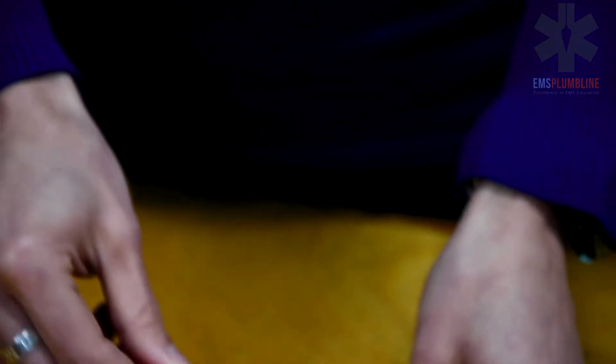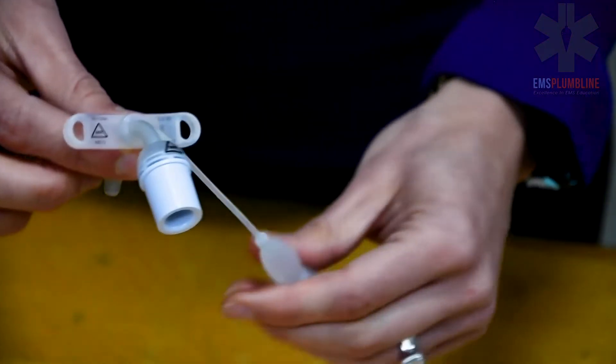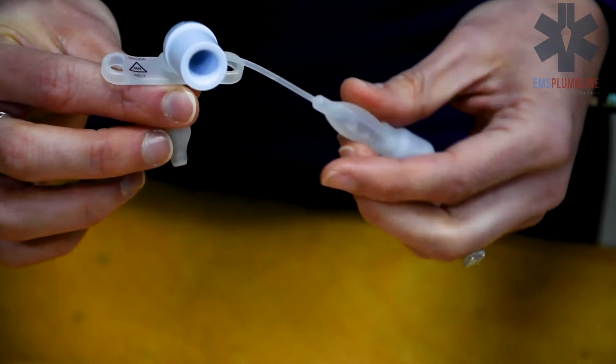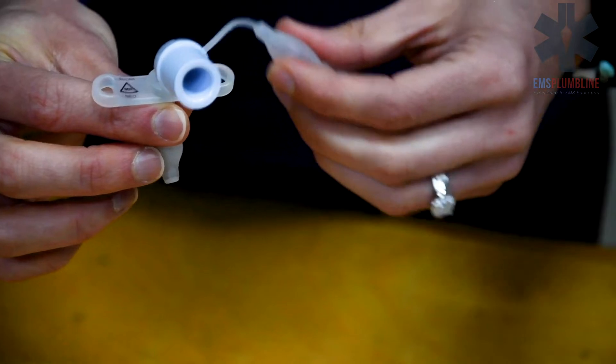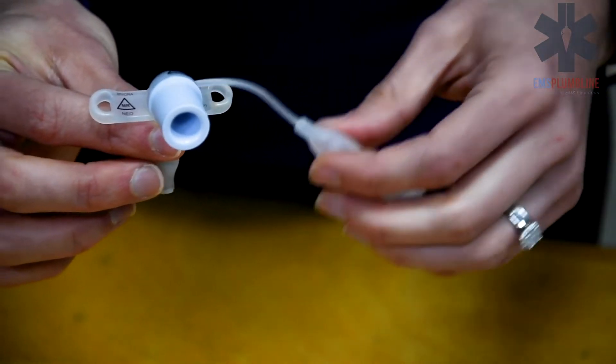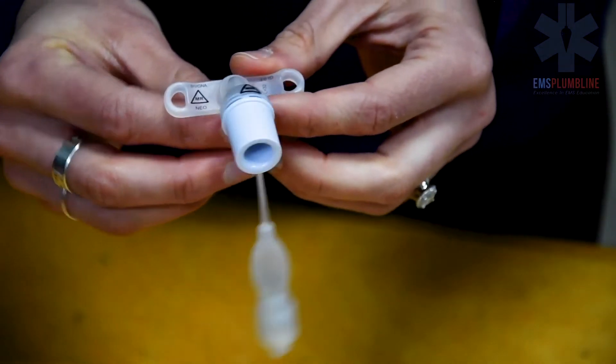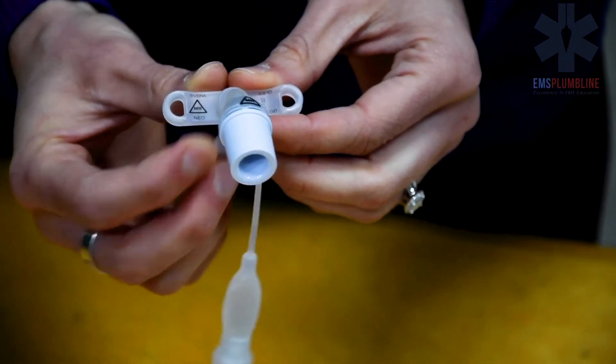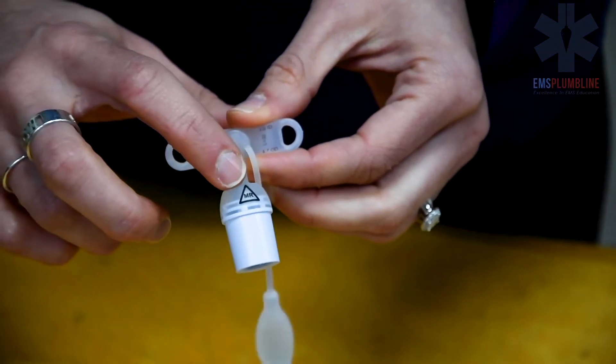This is a cuffed tracheostomy tube, as noted by the balloon line. The triangle on the tube indicates it is MRI conditional.